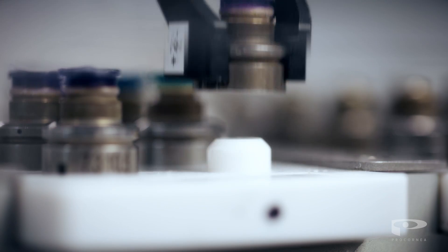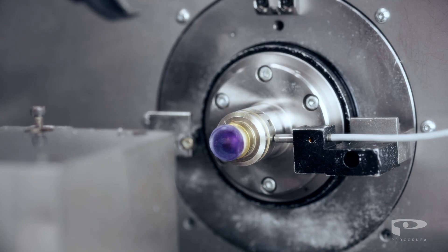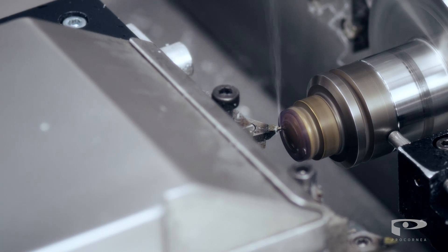Using our advanced technology, Ortho-K lenses are custom-made for the needs of each individual patient.